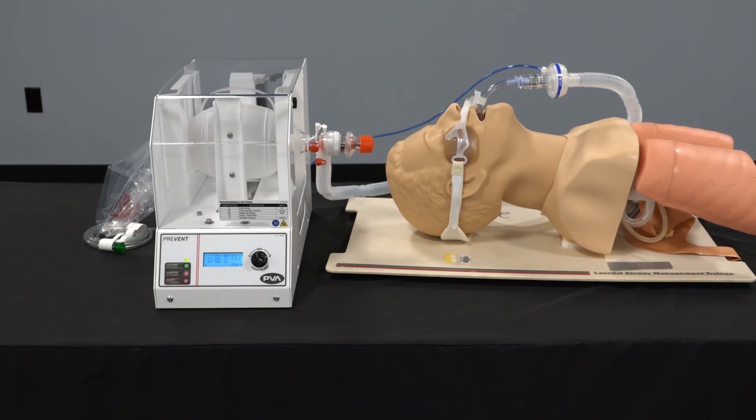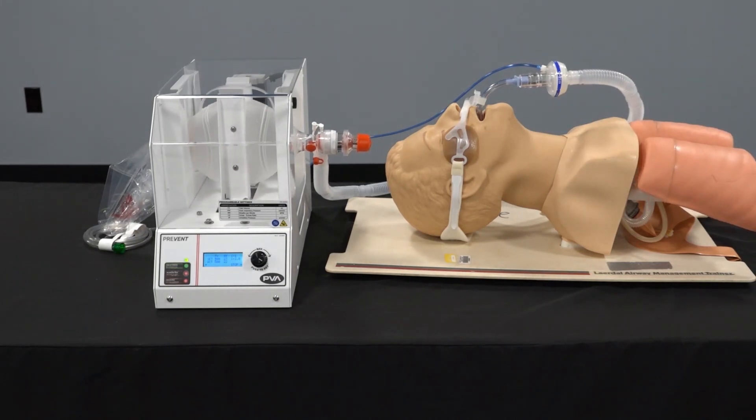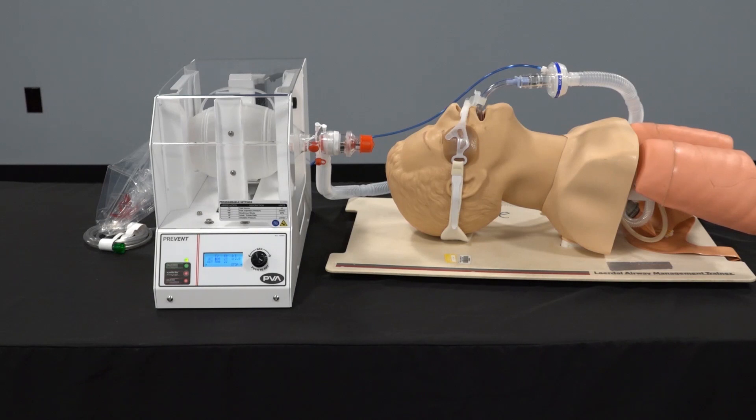Prevent is indicated for emergency resuscitation with appropriate patient care monitoring on adult patients who require mechanical respiratory support where modern ventilators are not available.